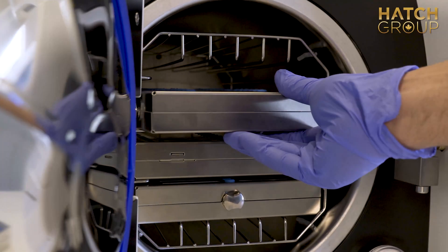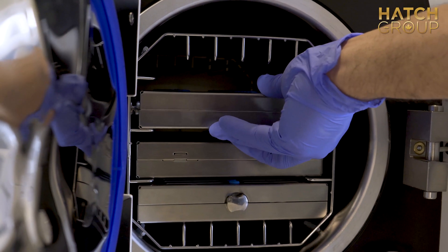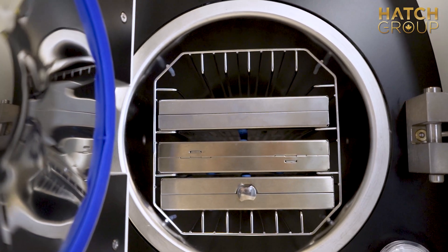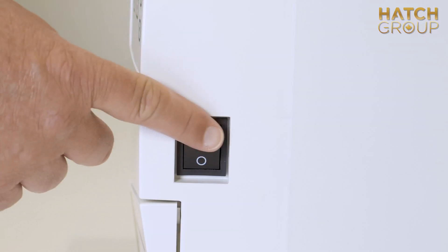The SmartClave has both a pre- and a post-sterilization vacuum, which provides deep penetration of instruments, ensuring a thorough sterilization and drying process within a minimal amount of time.